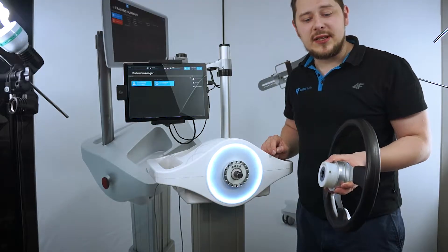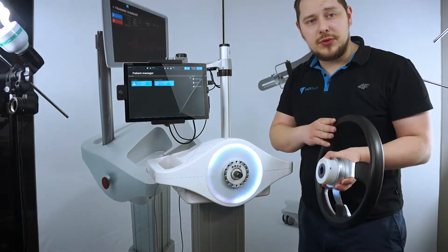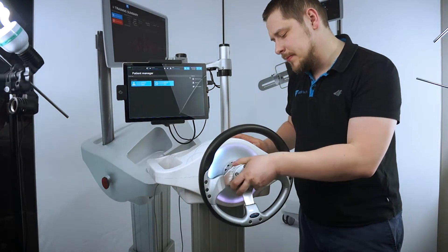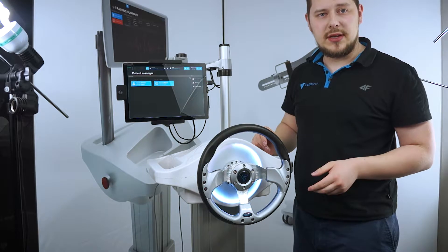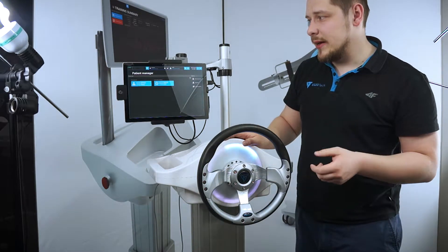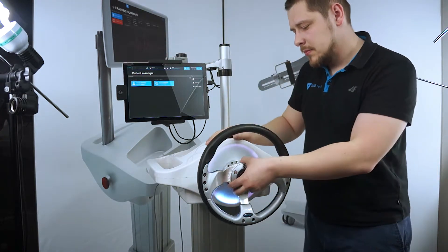With properly cleaned extensions and Luna's shaft, you'll be easily able to connect the extensions in under 10 seconds. Just put them in, put them inside, and the electromagnet icon is connected. If you want to take it out, just click the electromagnet icon again and take it out.